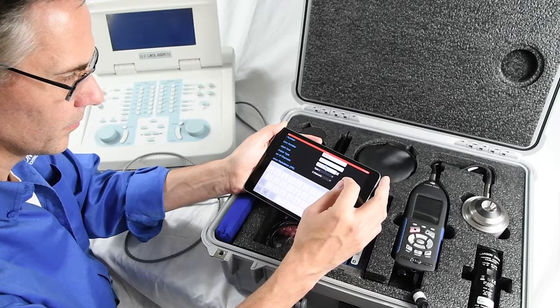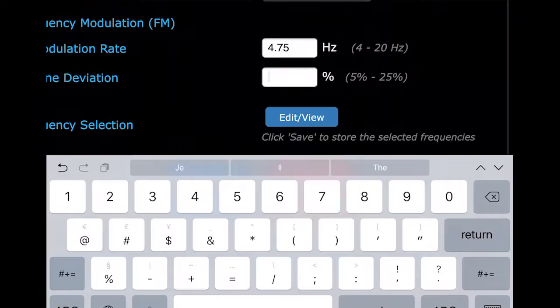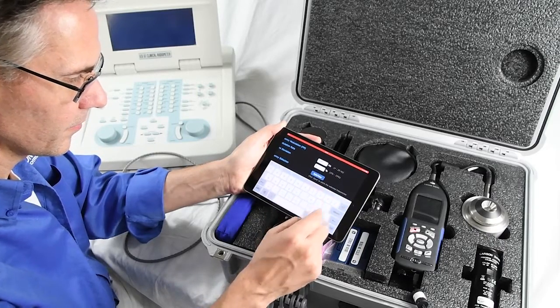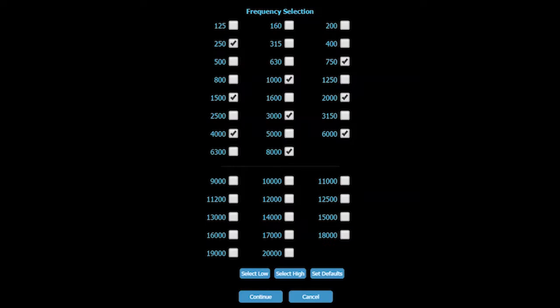Depending on your audiometer type, you may need to enter FM information. Then select the Edit View button for the frequency selection. This audiometer can output many frequencies, but we are just going to test a few of them today. When finished, Continue and Save.